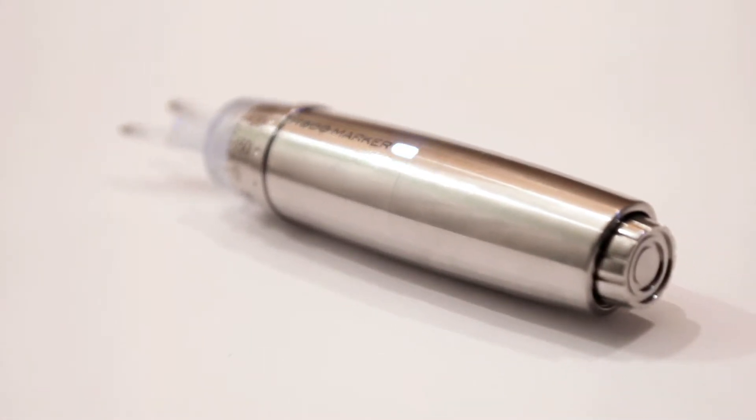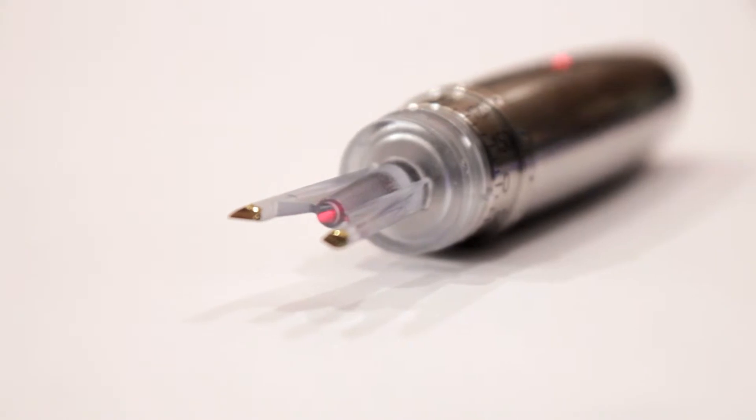C is for comfort. We're the only system that has an integrated fixation light. We measure the cornea telling the patient to look at a fixation light, and now for the first time we can mark the way we measure with a fixation light.